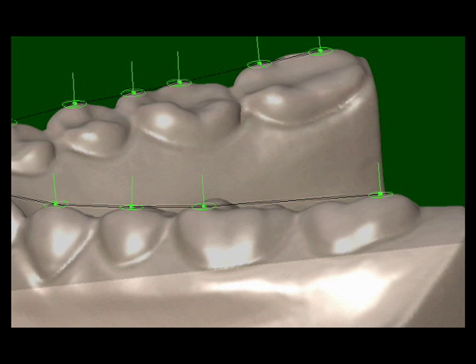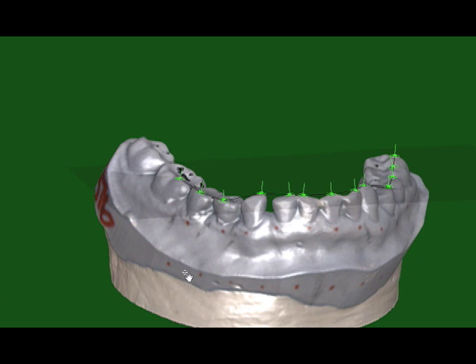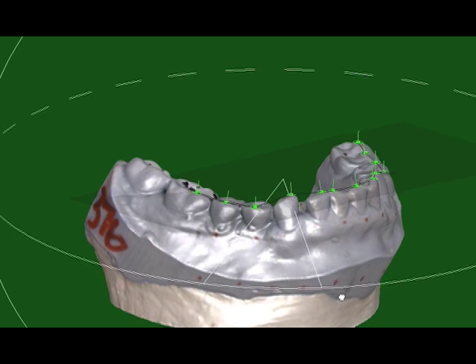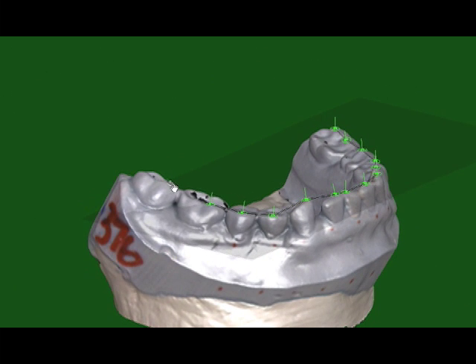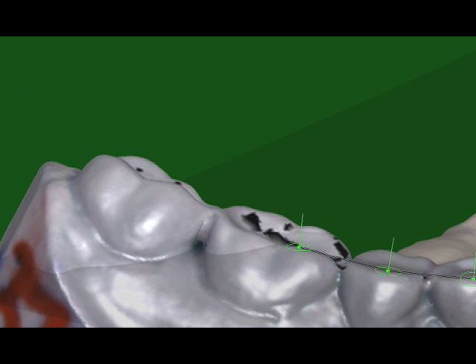An island area is defined by omitting contacts that tend to unnecessarily angle the contact surface. For contacts on teeth associated with large curves of spee, the arc of closure is used to optimize points instead of the occlusal plane.